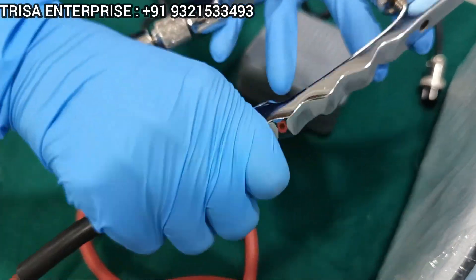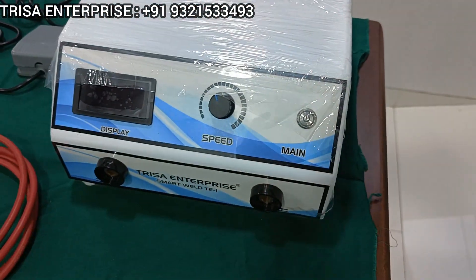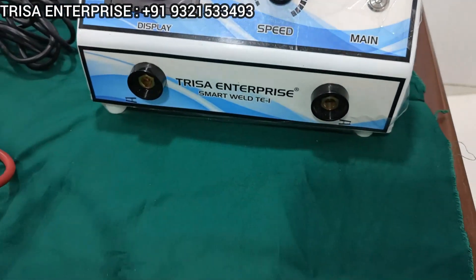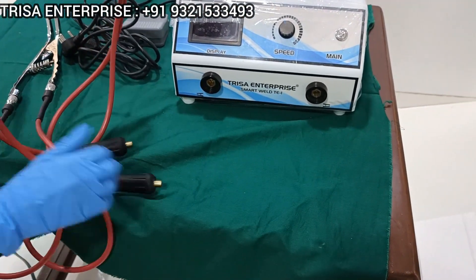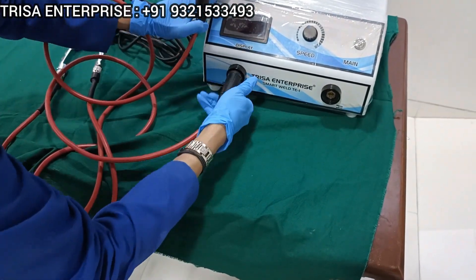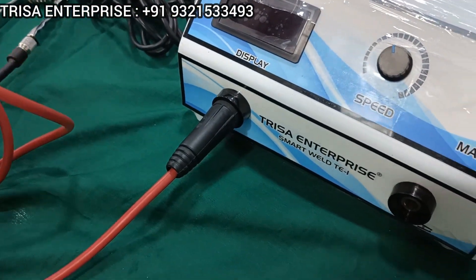Similarly, connect the other end, and now this plier is ready to be introduced into the machine. Here you see two sockets available. All you need to do is place the wires into the sockets. Make sure the wire is untangled and place the plier wires into the socket, then secure it by rotating it clockwise.